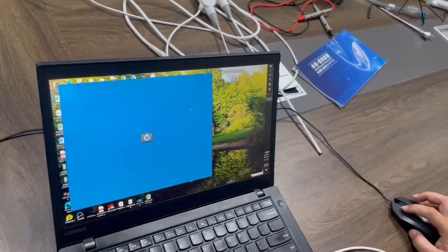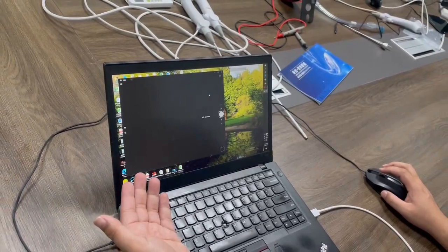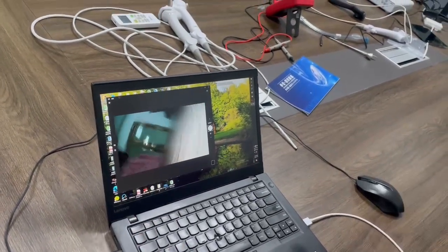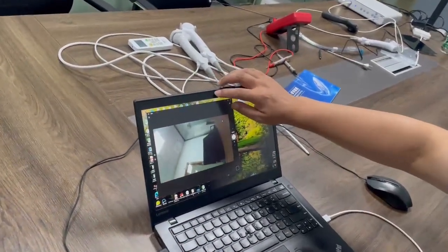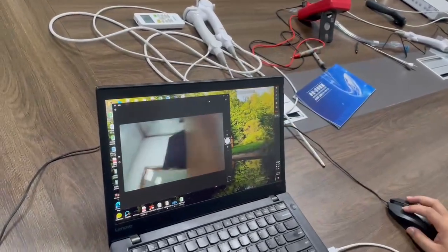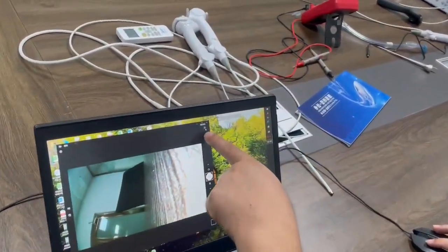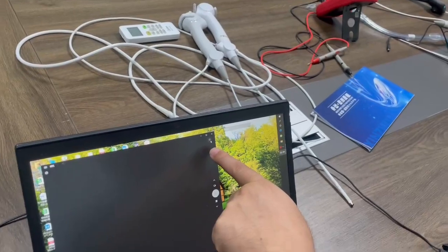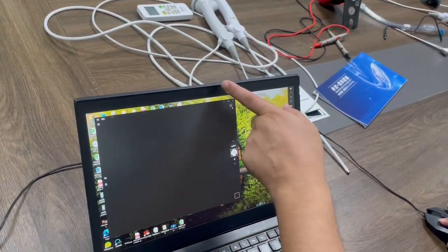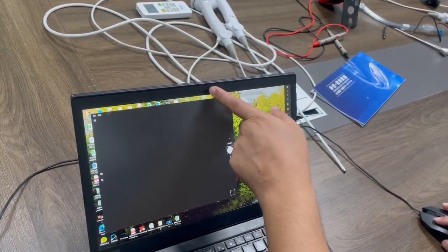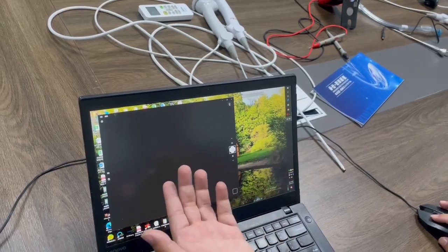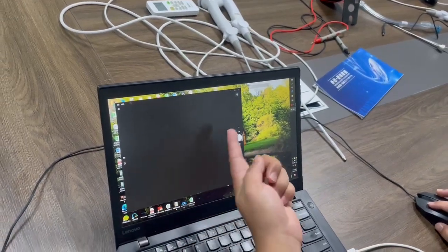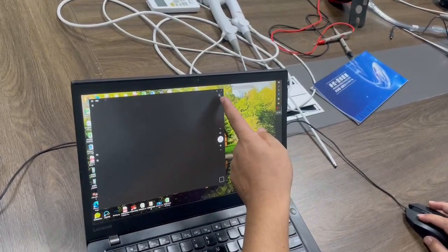Some Windows systems have a camera itself. You can see here, it's this camera, but not workable here. You can change the camera here.